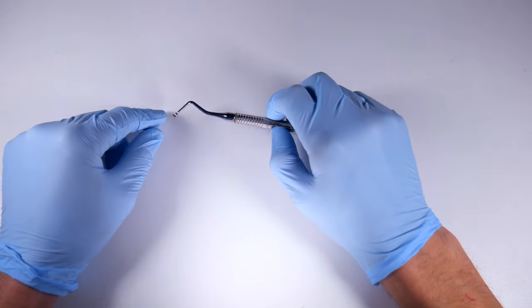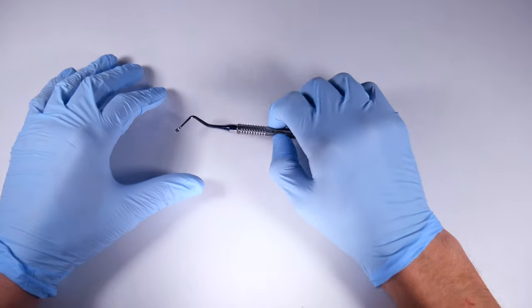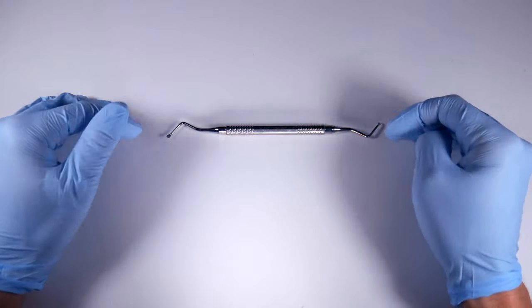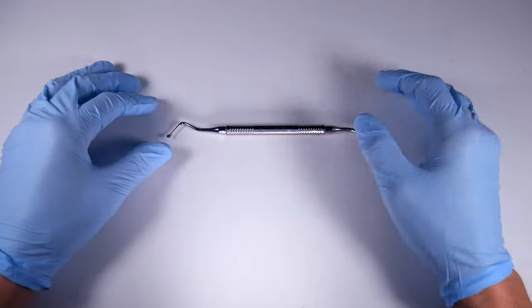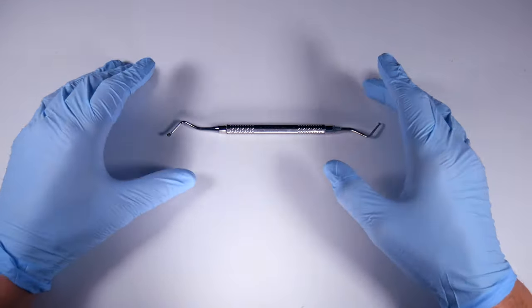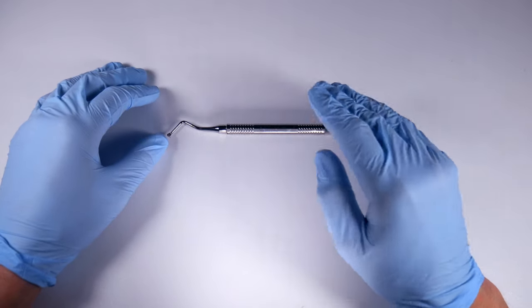It really grabs the bone and kind of pulls at it. So if you don't have like a tightly bound bit of tissue or some sort of pathology to scrape out, I'd probably stick with your regular curette. But again, if you've got like a big radiolucency around the tooth and you've removed it, you need to really clean out that socket.